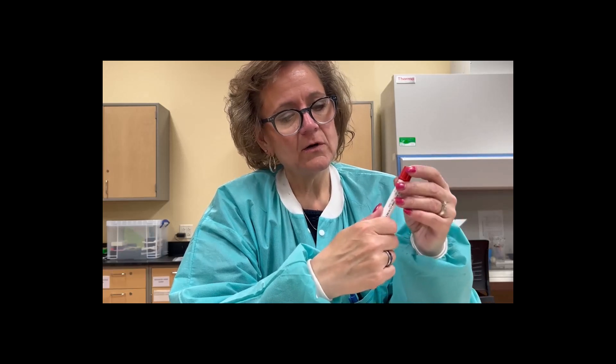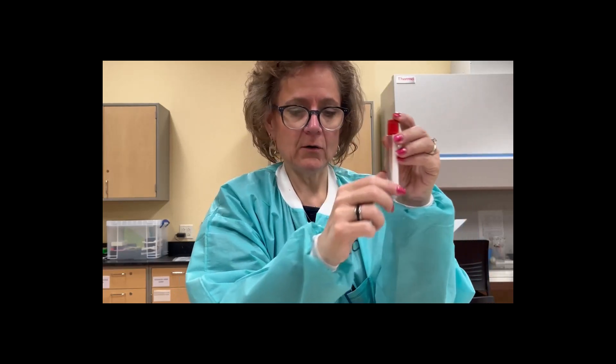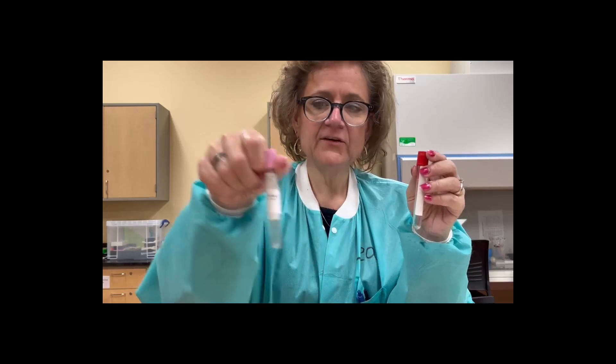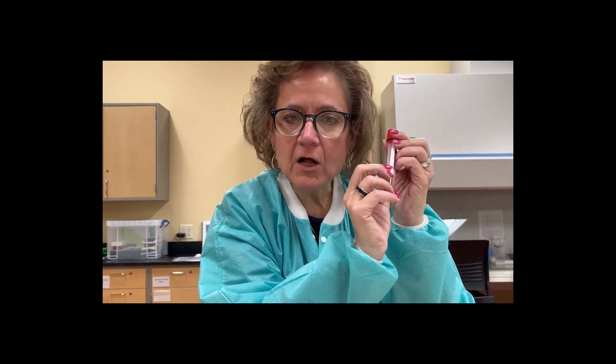There will also be a barcode scanner on it, and this is how our instruments read the barcode. If I try wrapping it, it's going to be spinning, get all hung up, and not read in my instrument. So I want to make sure my labels are on up and down, with the color of the tube showing and the barcode nice and straight with my window open. The lab will really appreciate you doing this.